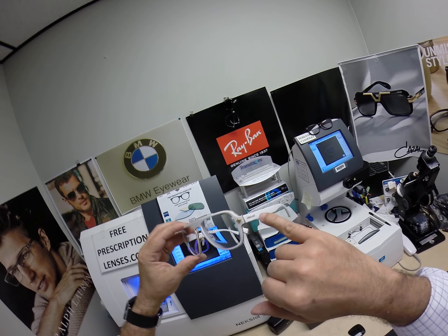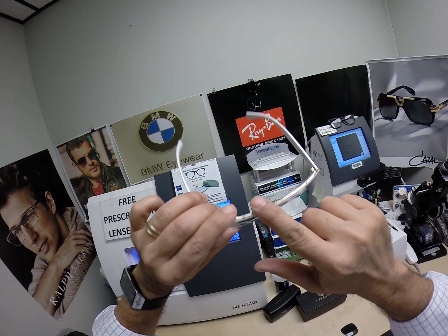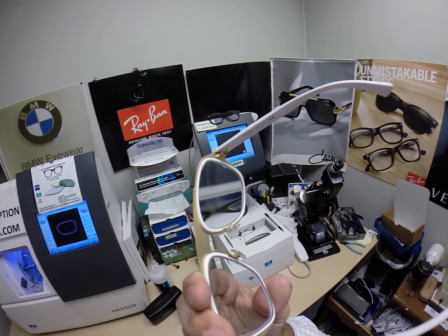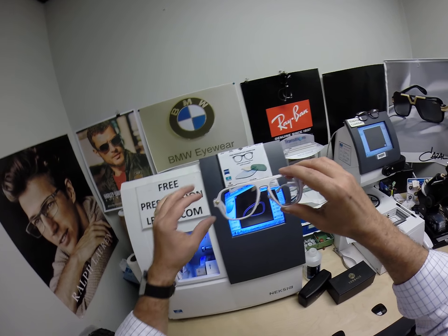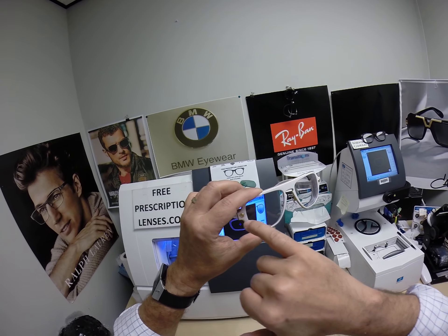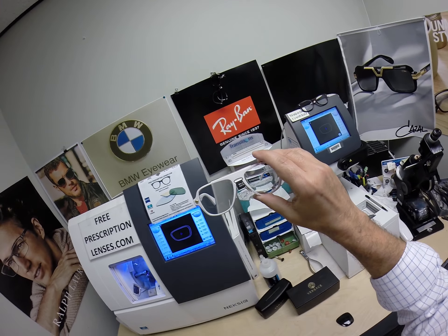It's going to match the gold trim and the gold print on the side of the frame. It has gold metal going around the top and the bottom, even gold nose pad arms, and the Versace on the inside with the gold plate that says Versace. This is a really, really nice frame with the keyhole bridge and styling. It's got the Medusa on each side of the front. And again, he got the Zeiss Photofusion extra gray.